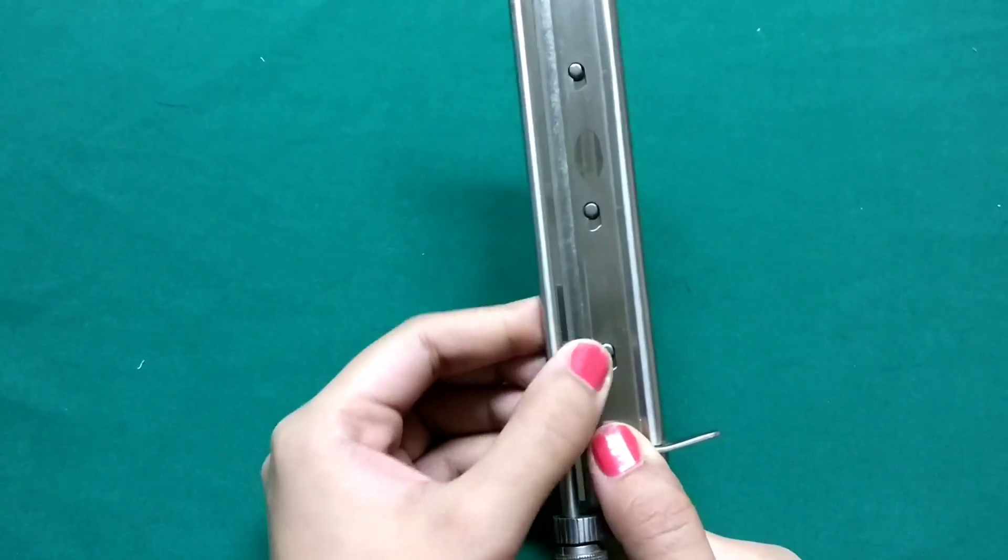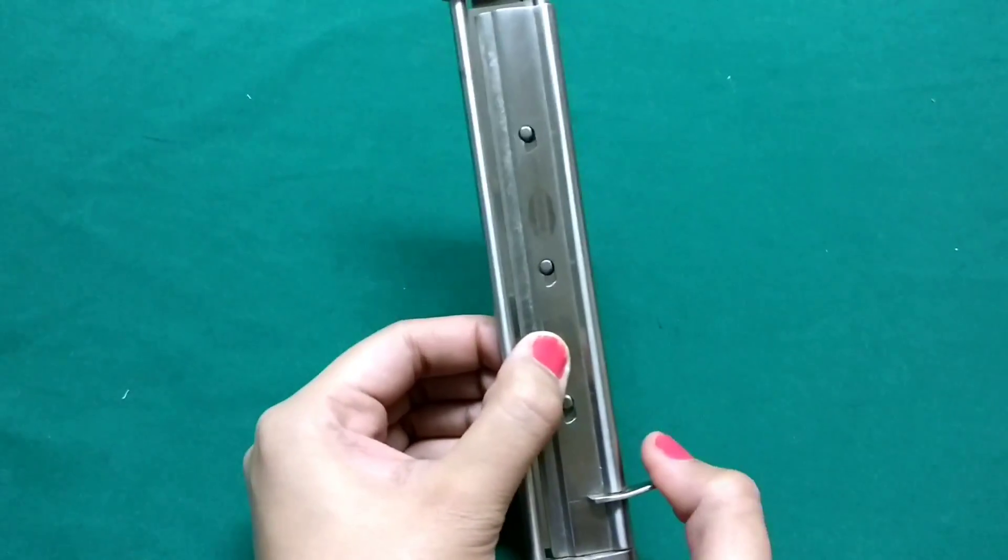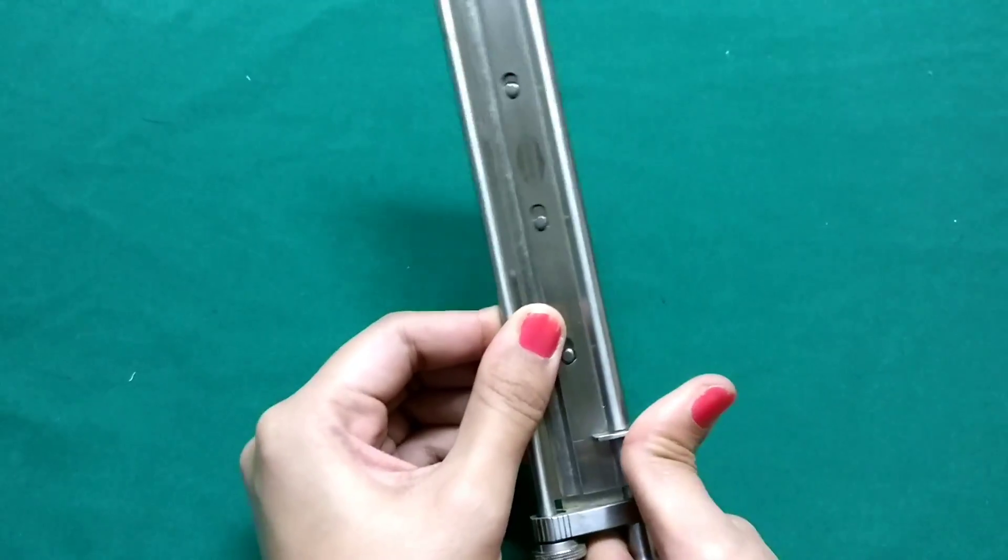And you have to close the flap over it and then you have to lock it. The locking has to be done by pushing it upward and it will get locked.